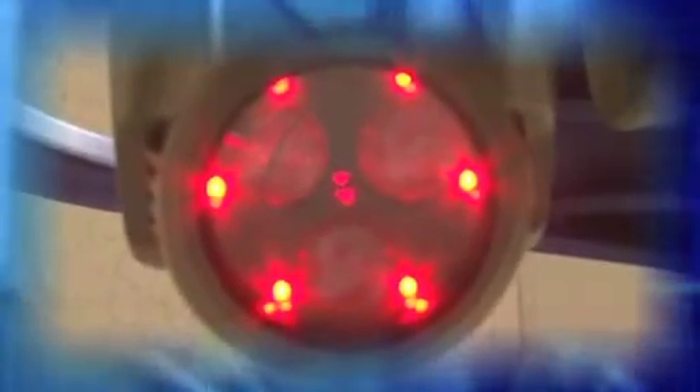What this machine does is it actually has a light beam that shines with a variety of different frequencies. This combination of frequencies actually shines on your skin. We don't even touch your skin — we don't do anything else except shine this particular machine on your foot, your leg, or wherever you need it. The light beam is on there for several minutes, and it actually stimulates the skin, the nerves, the veins, the arteries, and the cells inside that area that is hurting you to calm down and take away the pain.